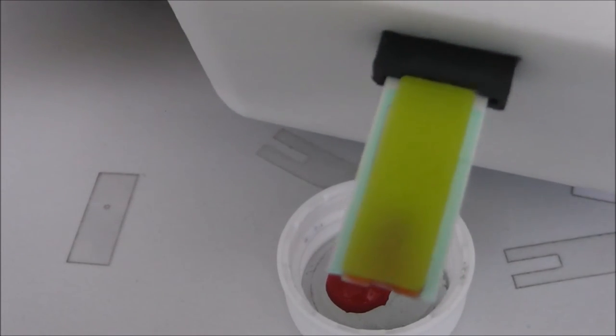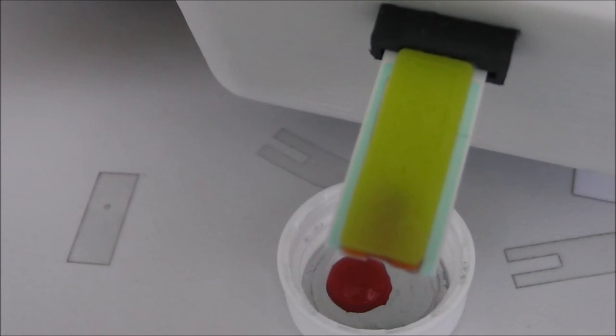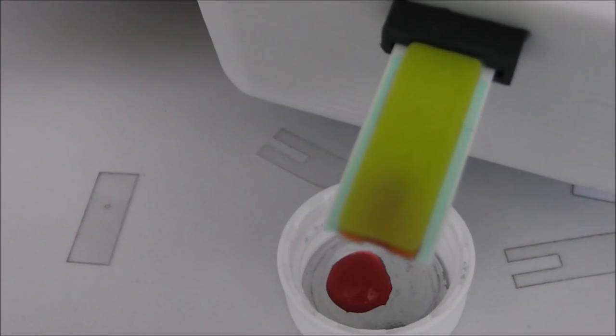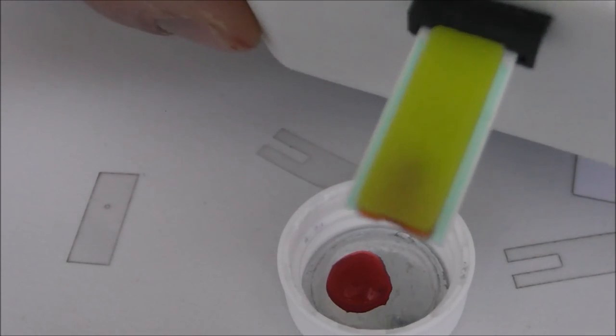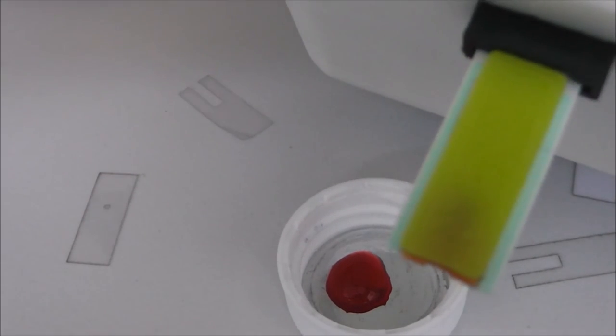Because basically, it's quite clear. We've created a capillary through the 3D printed part and we've created an air hole so, you know, the liquid does want to come up and fill that chamber. And you can see by the food coloring that we've actually done that and we've filled the chamber up.